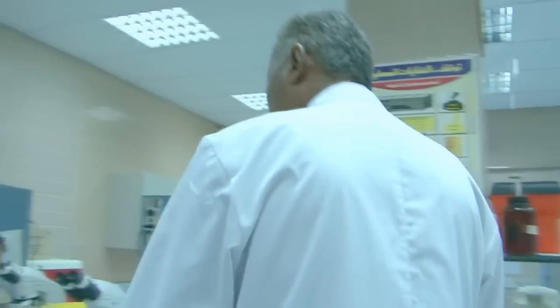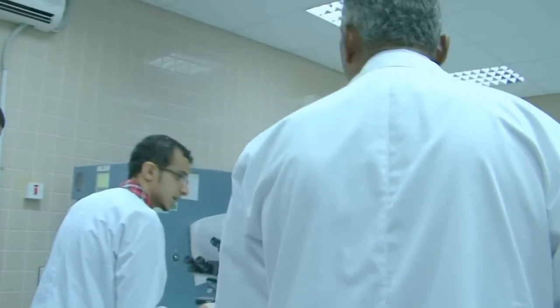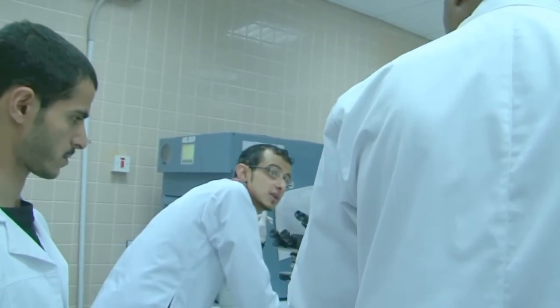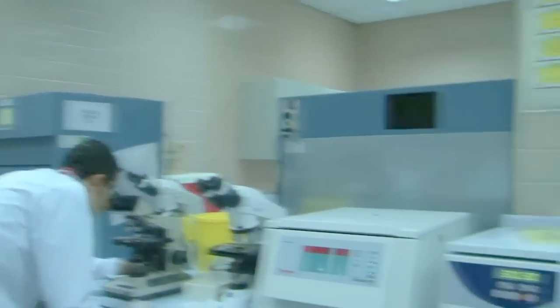Okay. So in this place they're also doing serology. ELISA is there with the serology. And this is for syphilis or hepatitis. Okay, so we'll go to the section inside. You go with us? Okay.